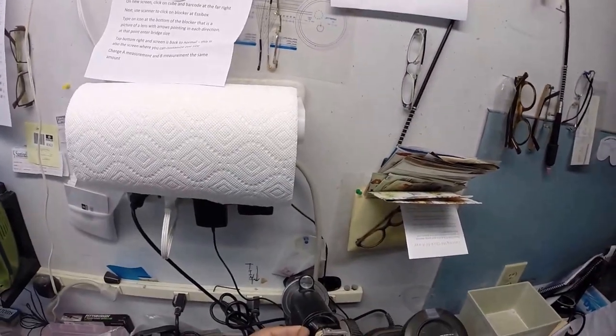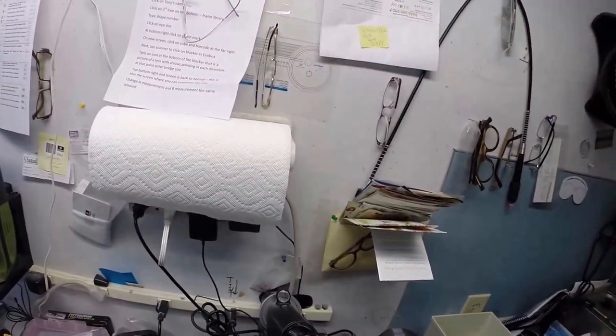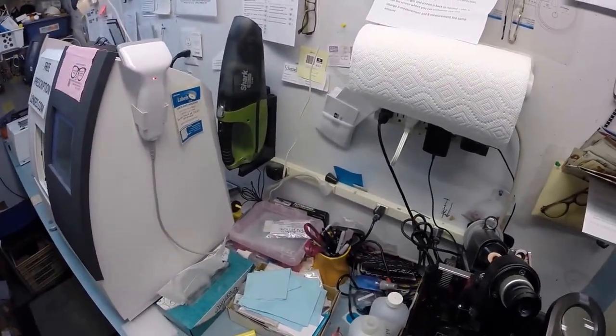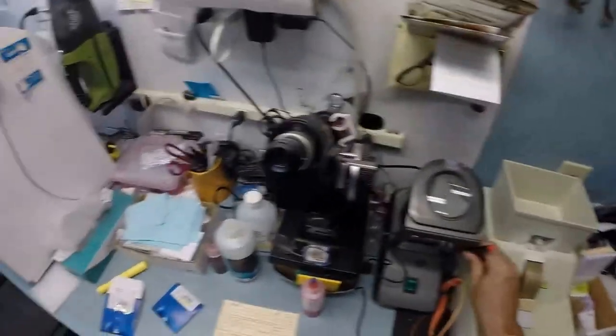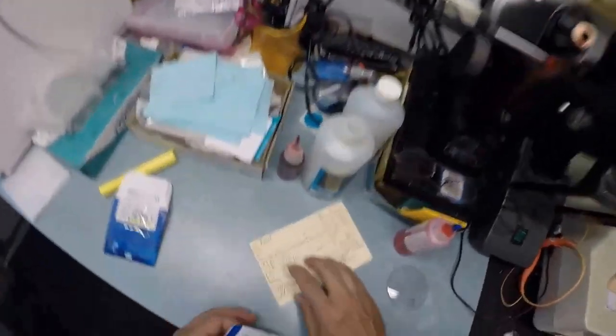They actually come with a little plastic laminate on the front of the lens to protect the lens while it is being shipped. I am going to put that on there and you will receive that too. I am going to put your lens in, find the center. I am just going to put the three dots on your lenses. One of which is really light and it is actually not even needed on this one, but we are going to put an R on here for right.